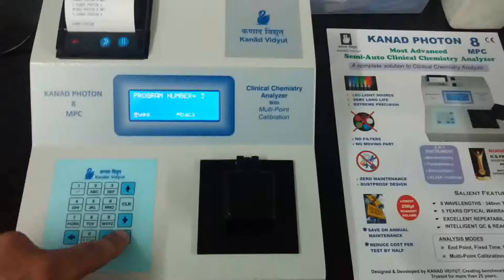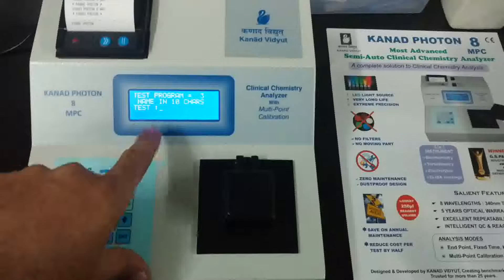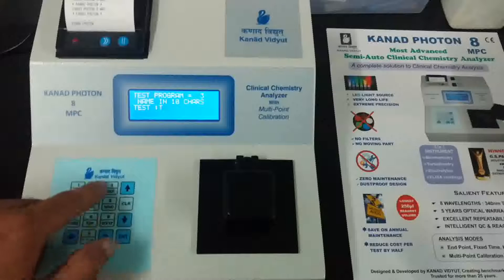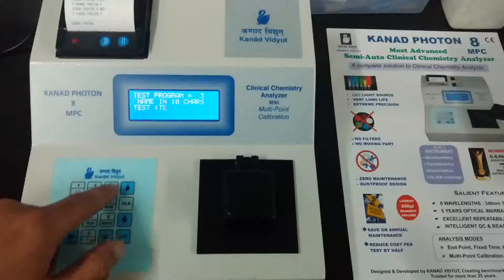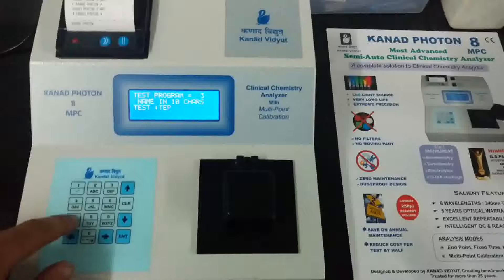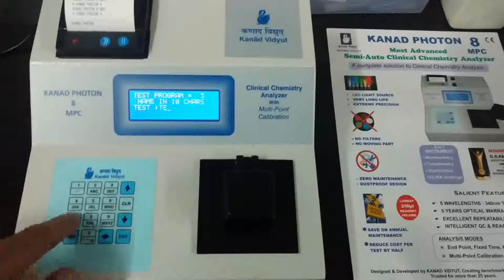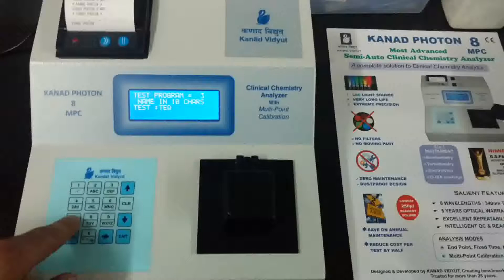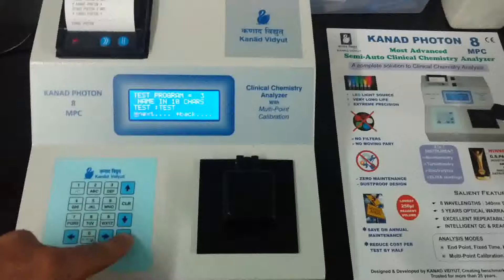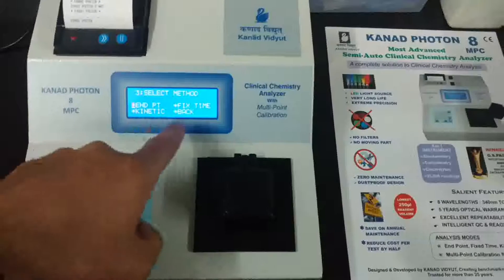The machine will show the new program number first. Next, enter the test name in characters — whatever name and parameters are given in the test sheet, you have to enter those. You can use CLR to clear the field. We will enter the name as 'Test.' Confirm the test name: yes.